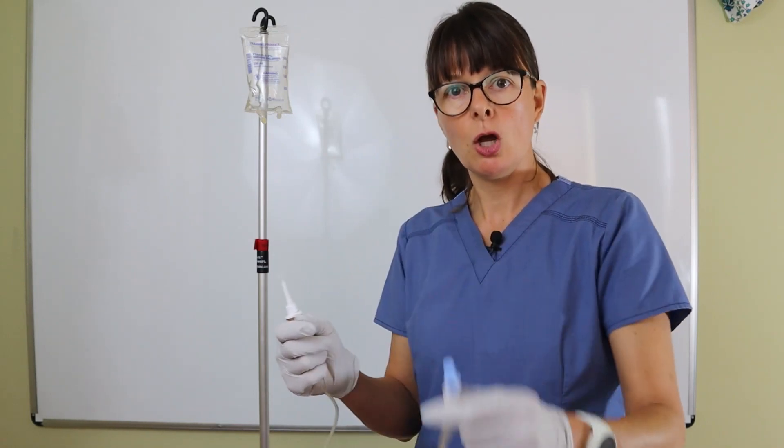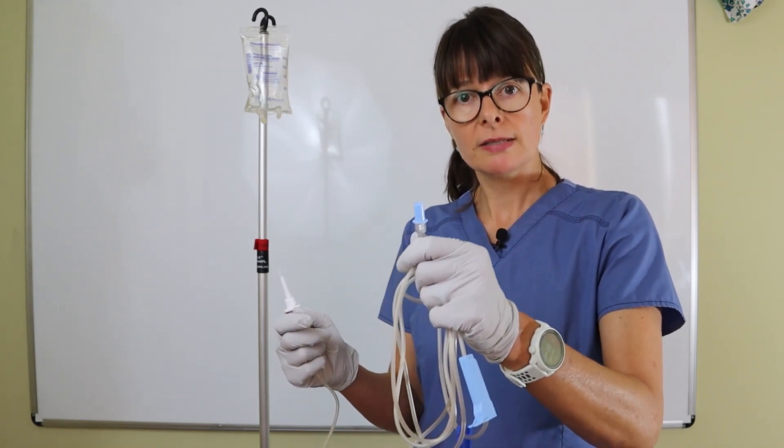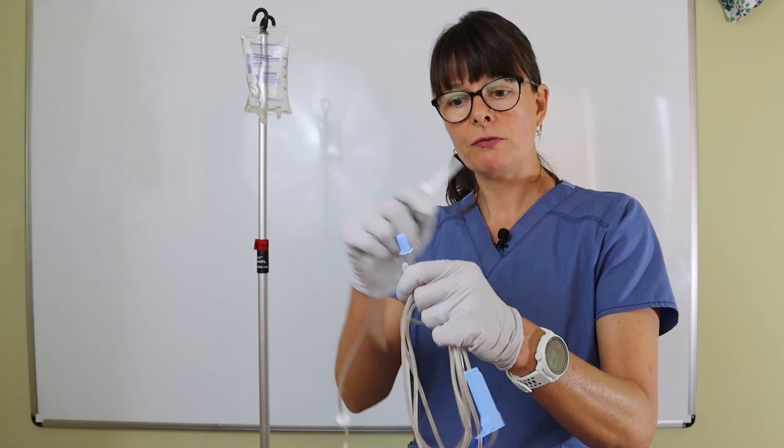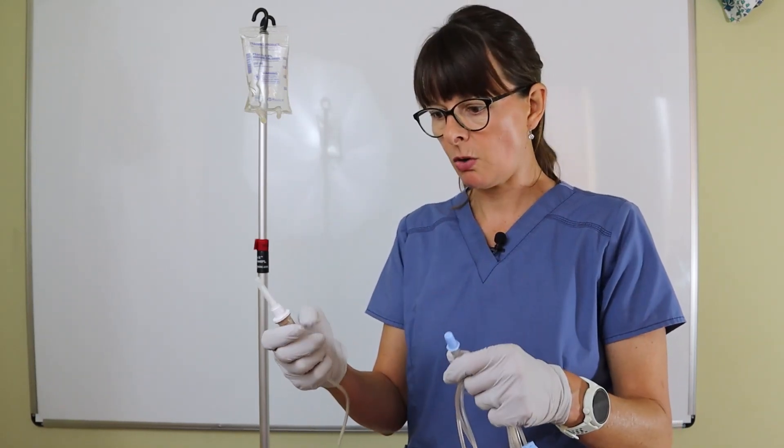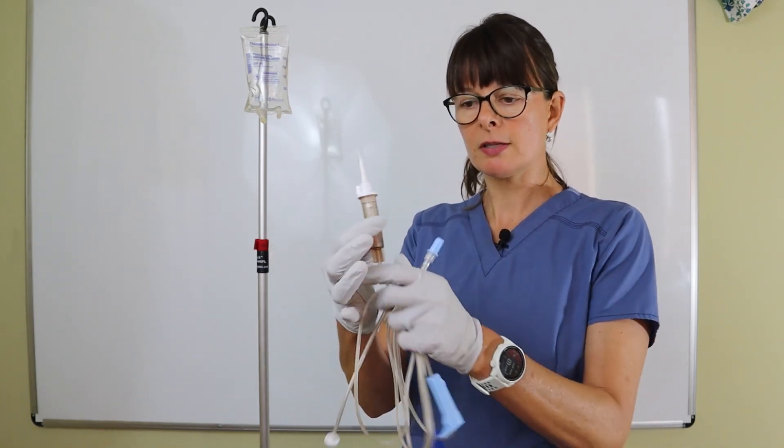Make sure the cap is on. If the cap is off, you don't know what's been happening—use different tubing, please. Patient safety is always first. I've closed my clamp, and this is the drip chamber. I have this cap on the spiker right here.